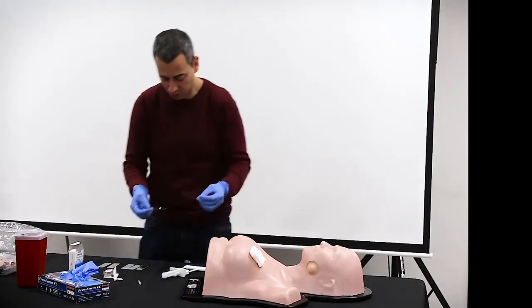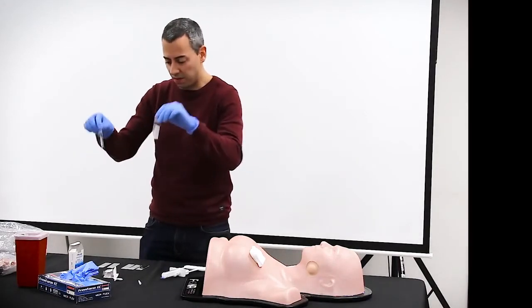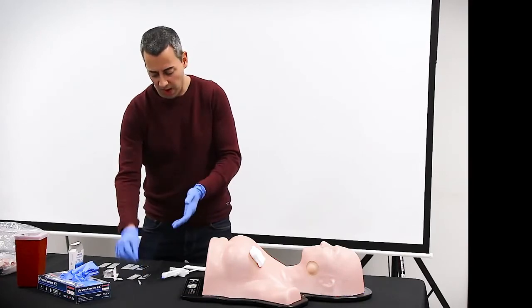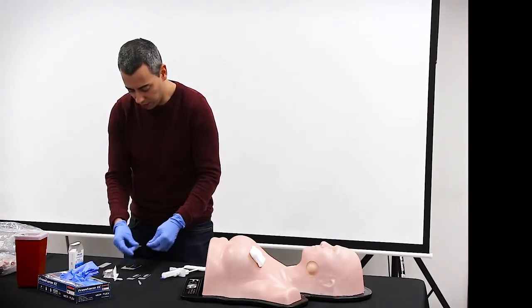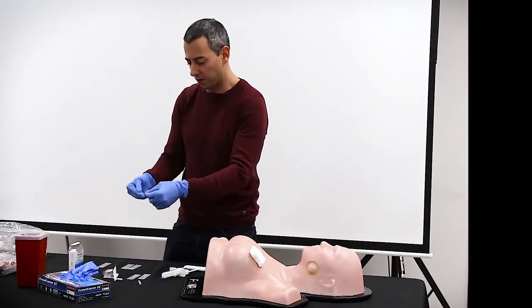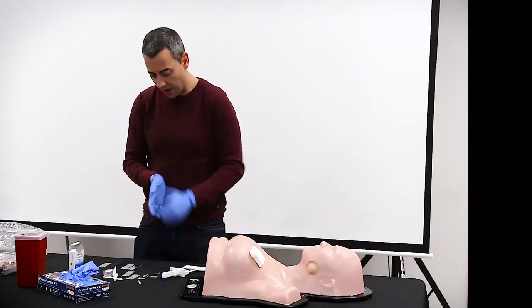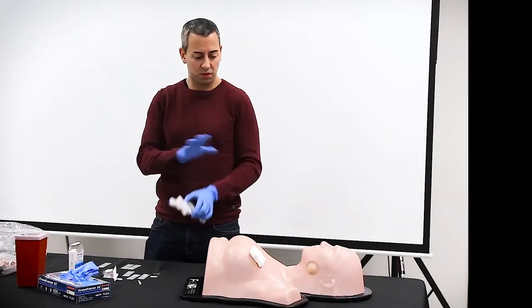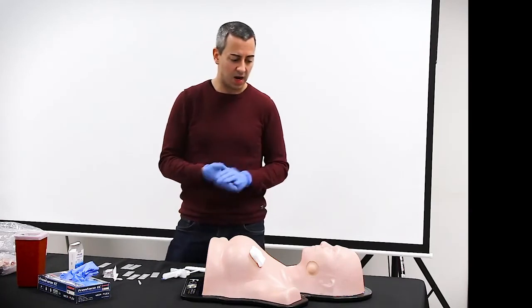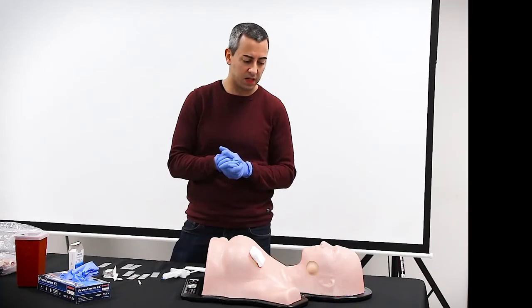And then students can perform the smear, and then they fix in alcohol or air dry. There are different methodologies, different ways to perform the smear, depending on the school, perpendicularly or parallel. And then you can even rinse the needle for molecular purposes. So just a few seconds and we have obtained a pretty good sample of a patient who can have a disease like a cancer, infectious or inflammatory.